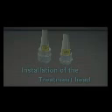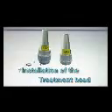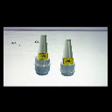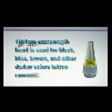Keep warming up the machine for one to two minutes. Installation of the treatment head: the laser machine has two treatment heads — 1064 nanometers and 532 nanometers. The 1064 nanometer wavelength head is used for black, blue, brown, and other darker colors tattoo removal.